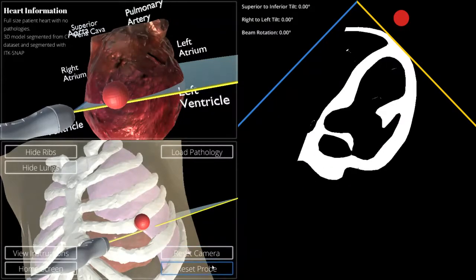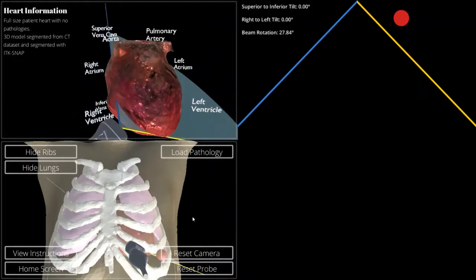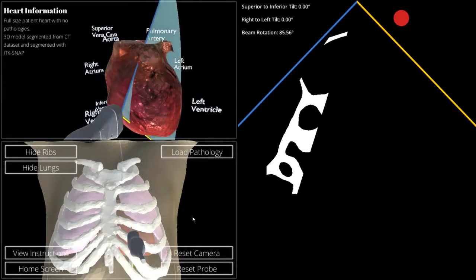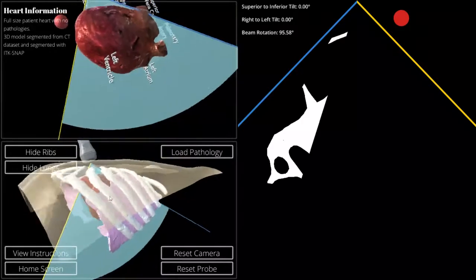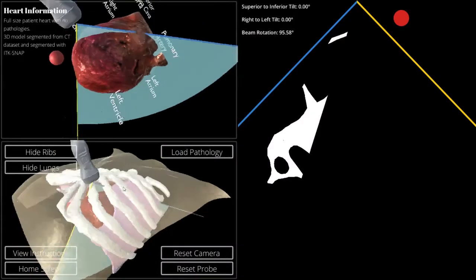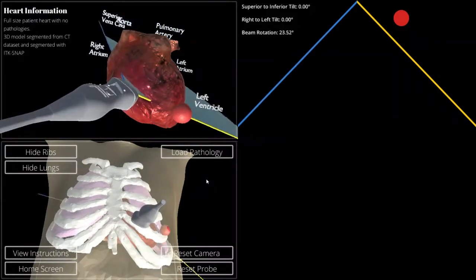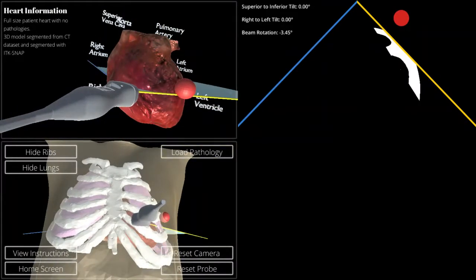The shaders aren't up to par just yet, but we're working on it. So as we move forward, we can see what happens if I were to position my probe over a pair of ribs here. It's being cut off here, and it's being cut off by the lungs a little bit towards the left-hand side of this beam, indicated by the blue bar over here.